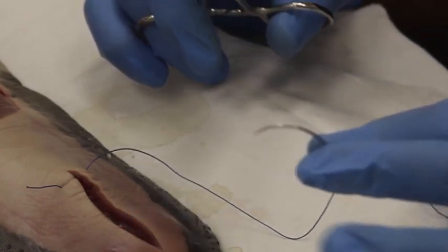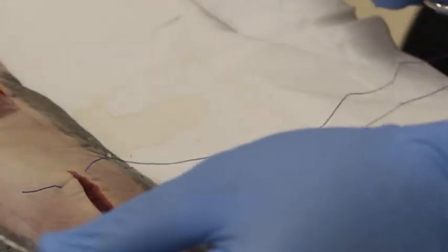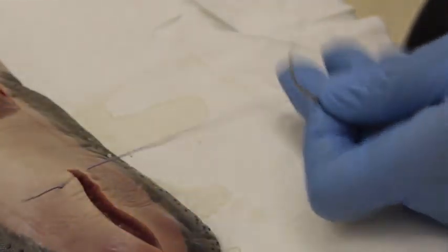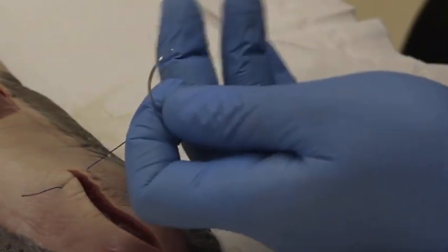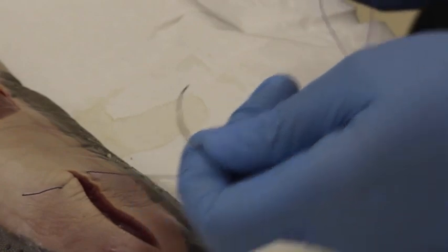You see how I hold it like this. The suture is very long and what you need to do is put it in your palm between your middle finger and your index finger. Now I can work right here.